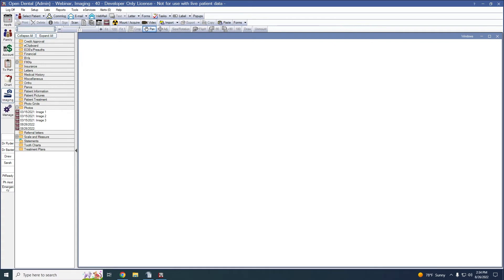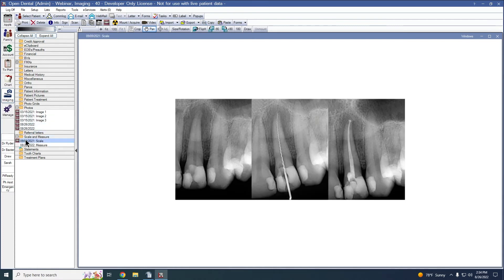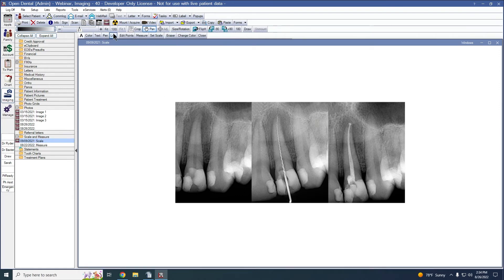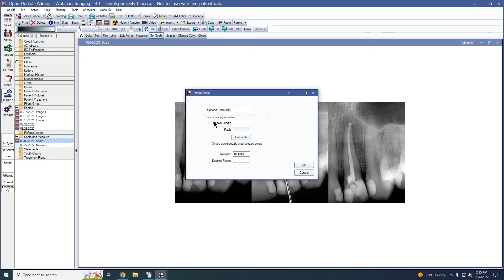Next, we'll go over how to add and measure lines on an x-ray. We'll need to start with some one-time setup so we can calibrate the scale for our measurements. To begin, import an image where you already know the measurement of a line. Click Draw and then click Line and draw our line of known length. Click Edit Points and then you can click and drag the line to make it more closely follow the curve. Once we're satisfied with our line, click Set Scale and immediately hit Cancel. Click on our line and the length of our line in pixels will populate automatically. Enter the known length and click Calculate, and the pixels per unit will populate. You'll want to copy that number of pixels per unit because we'll need this later for our mount definitions.